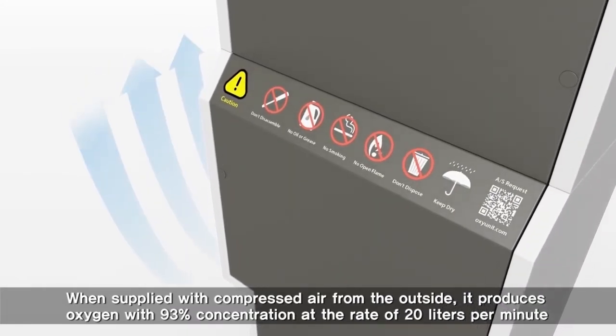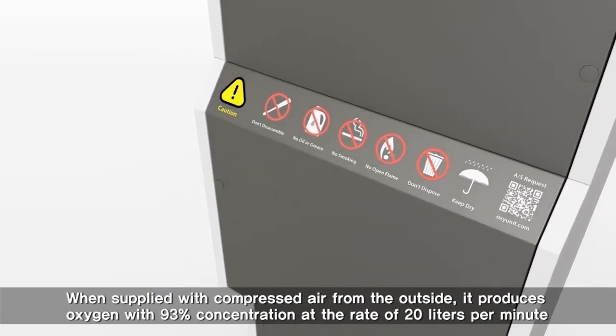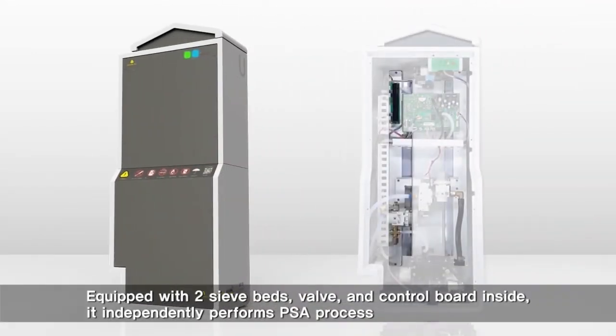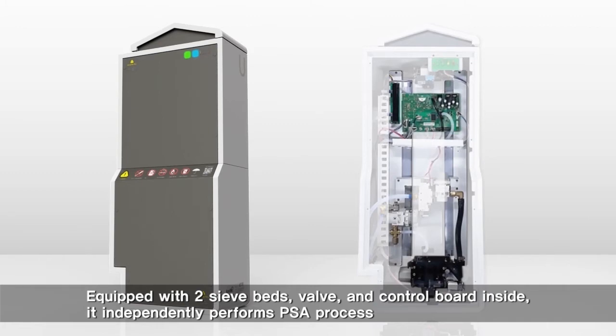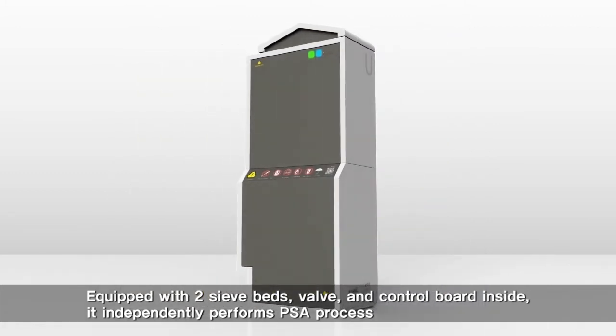The Oxy Unit produces oxygen with 93% concentration at the rate of 20 liters per minute. Equipped with two sieve beds, a valve, and a control board inside, it independently performs the PSA process.